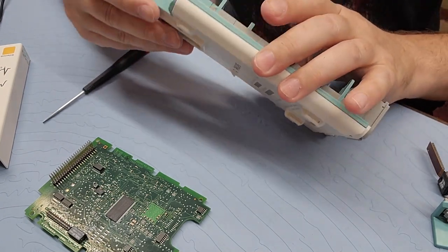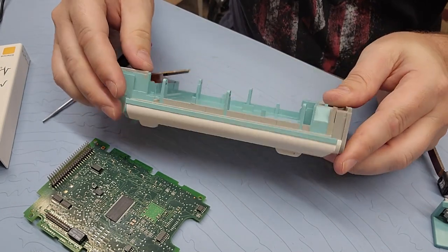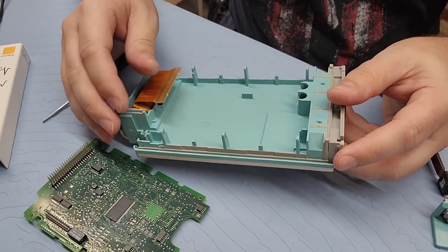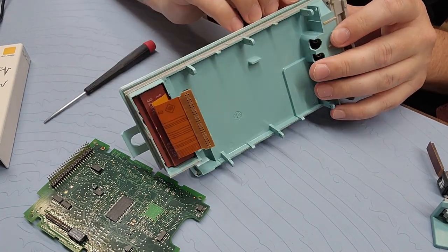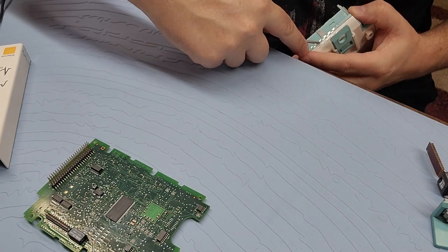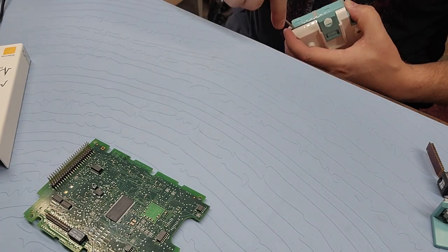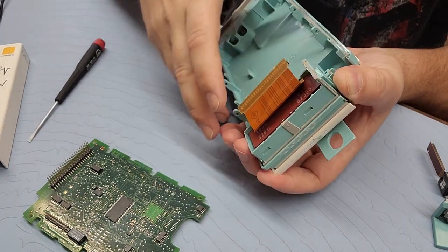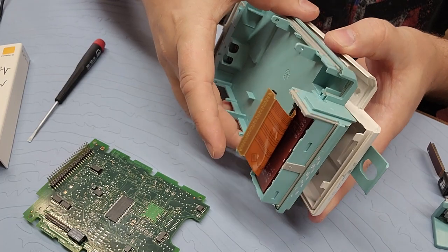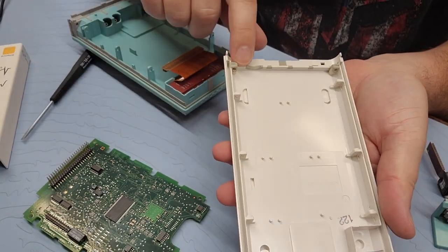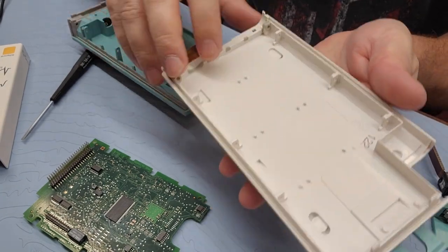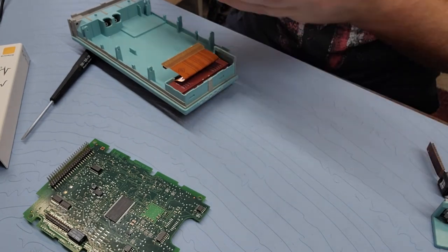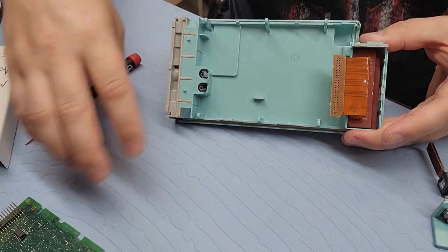And now let's get to the other side of this bad boy. Let's see. How do we do that? I do not think I have ever gotten to the other side of this device. Let's see if I can get a bite down here at the end. There it is. Alright. Okay. So, I just went down to this end with the ribbon cable. And I was able to get a very light bite. Very easy. So, you do want to pay attention to the fact that it does have this rubber seal around the perimeter. Make sure that that seal is not damaged.